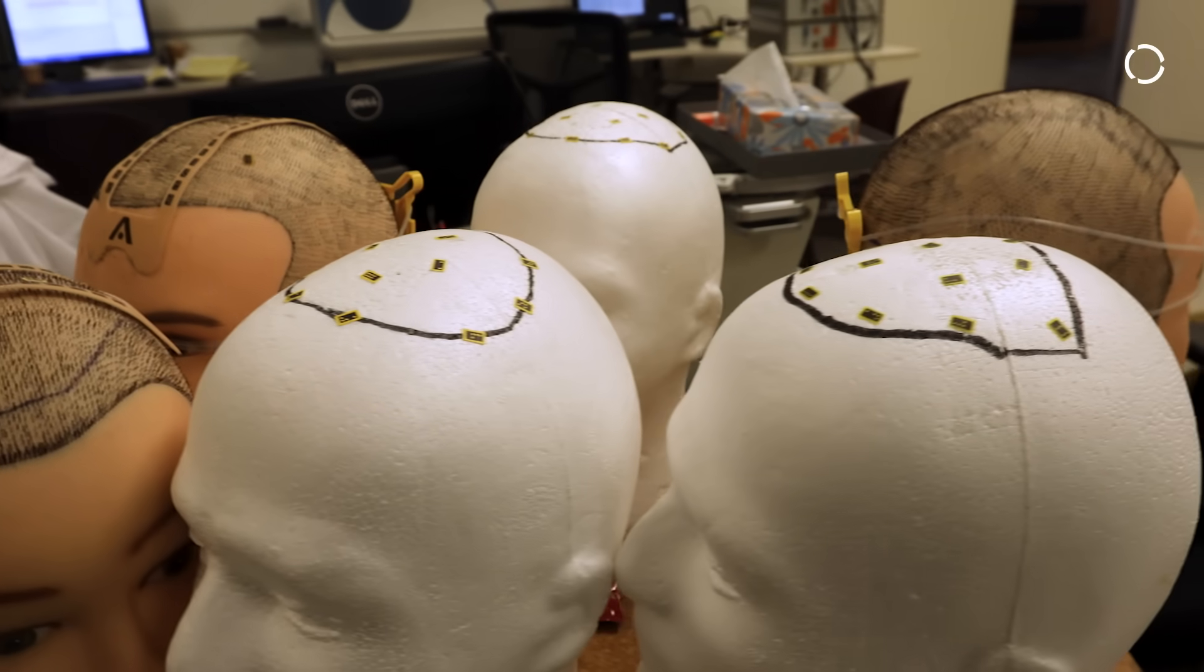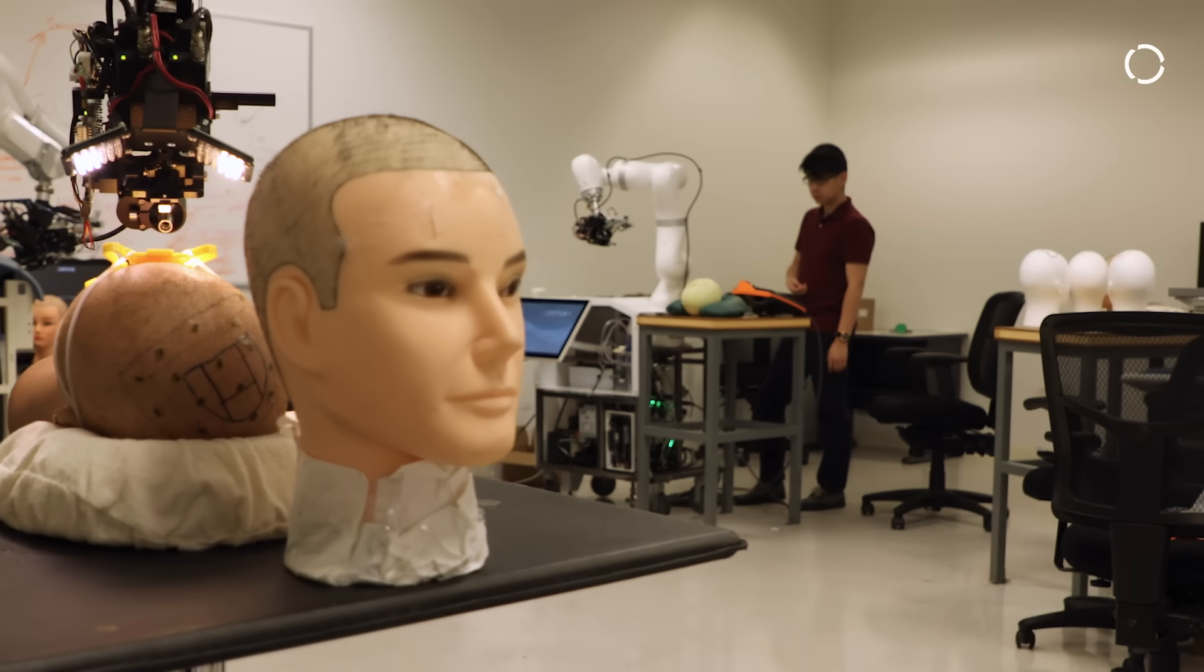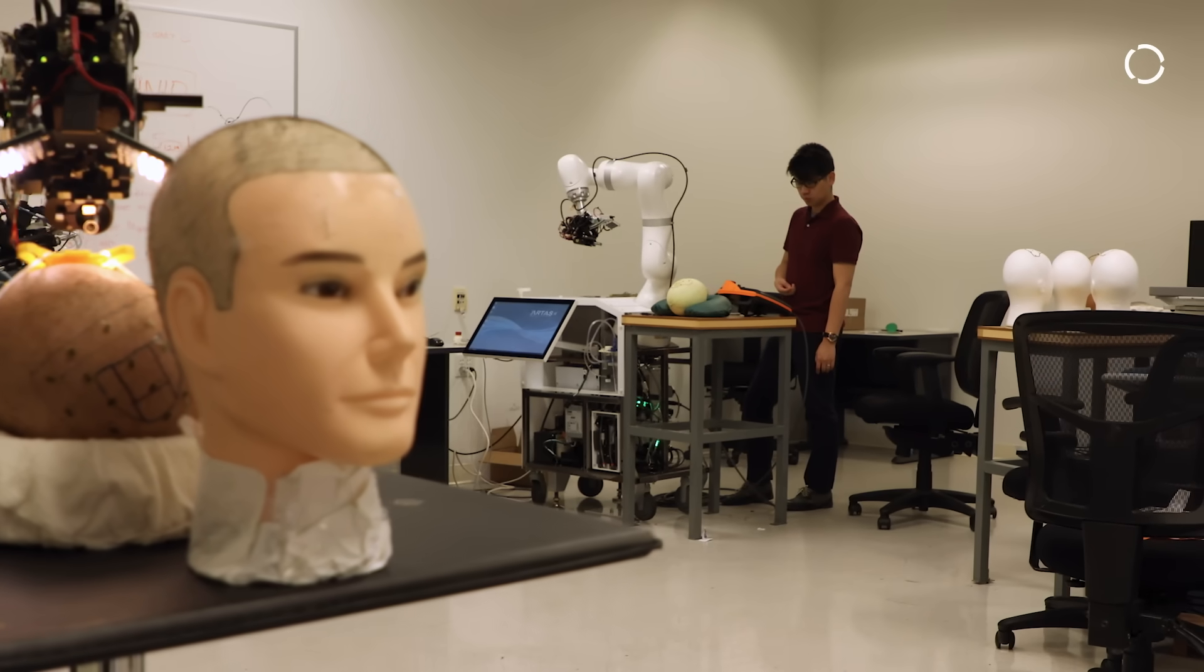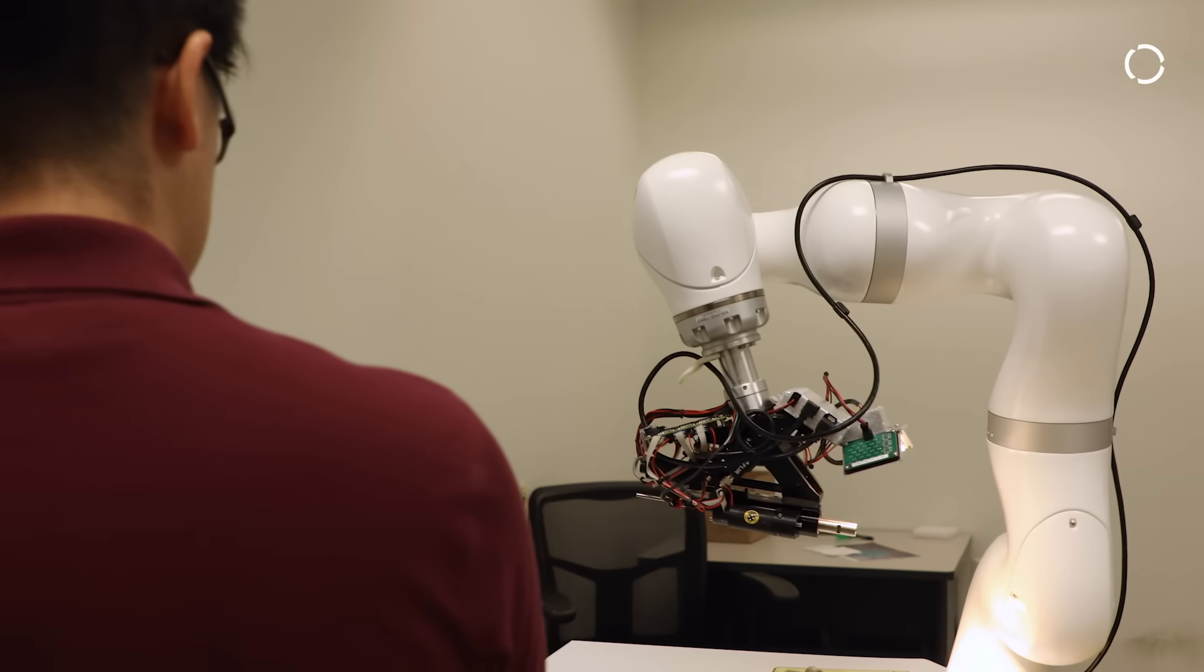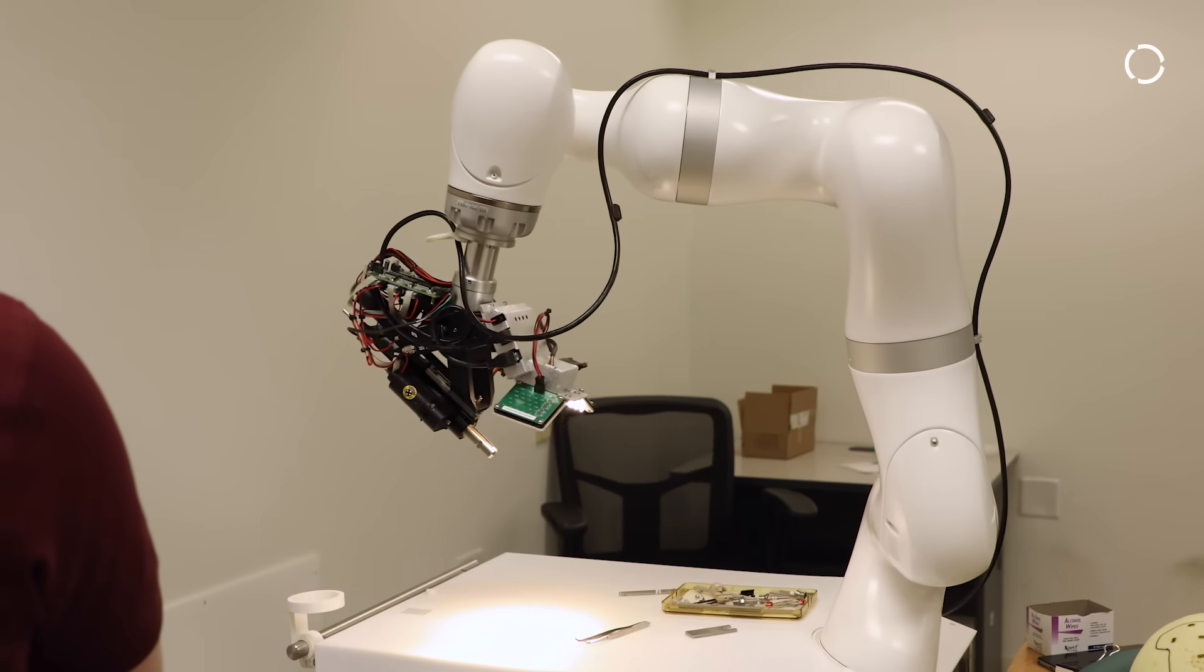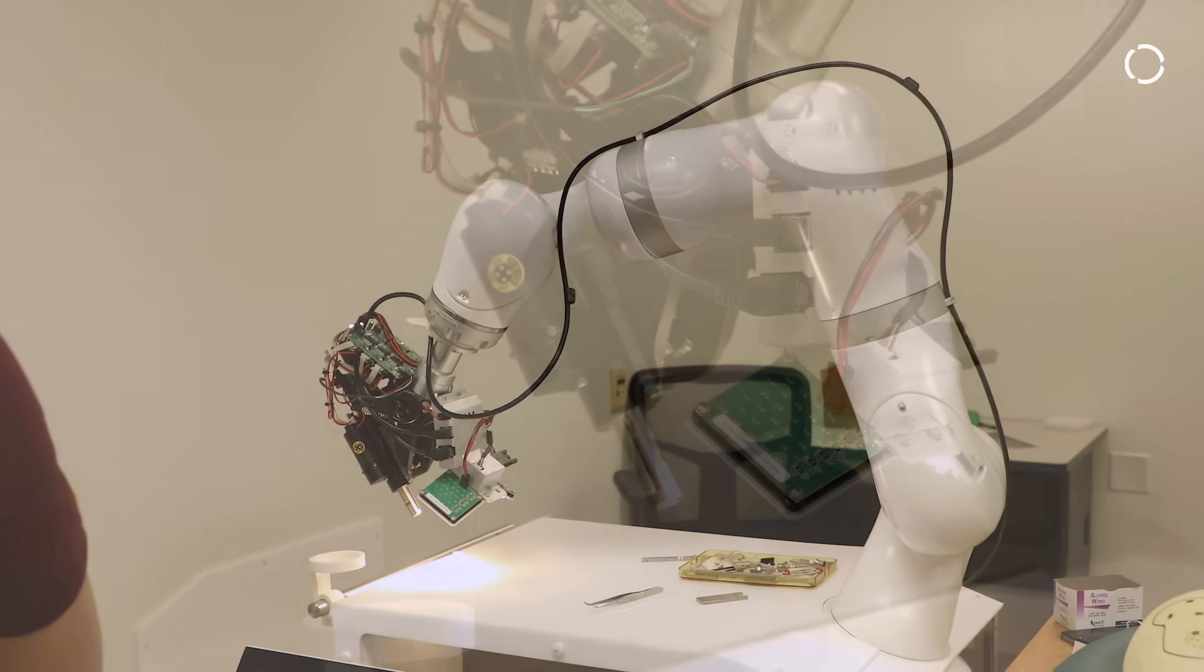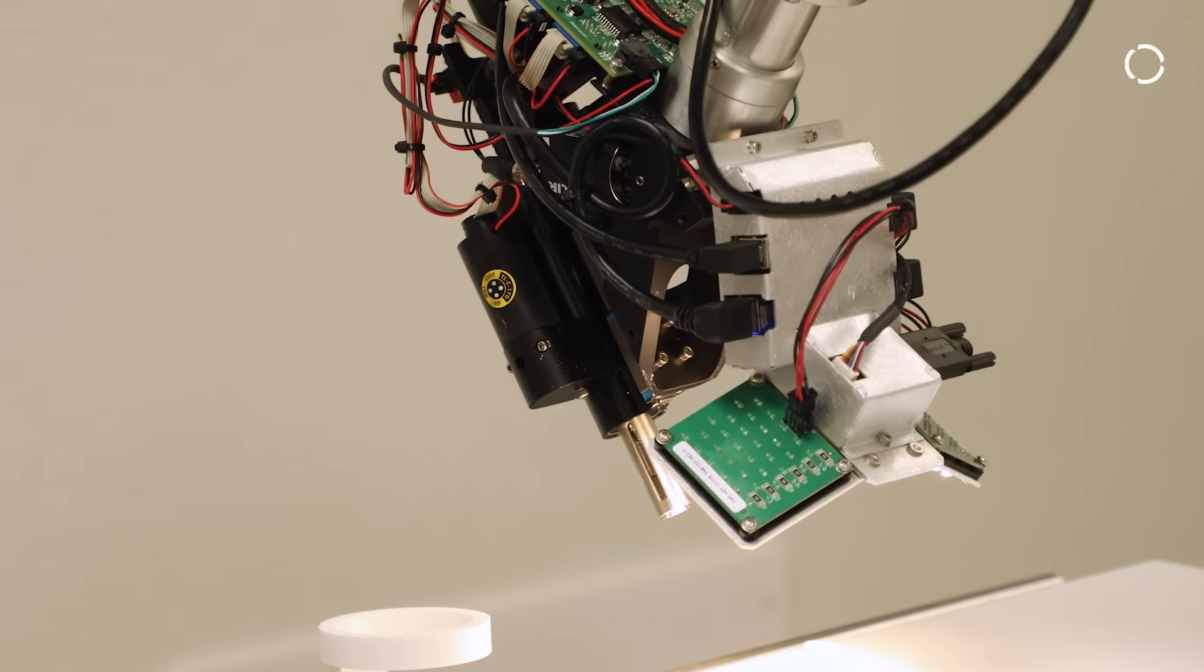The reason why Restoration Robotics partnered with Kuka is because the relationship started just out of pure willingness of working together. One of Kuka's regional sales managers just loaned us a robot. It was a handshake and I told them they're needed for a month and it turned out to be needed for like a year. It just kind of magical happened and by the time we realized the platform was solid, it could work, we could build a system. At the time we knew the relationship was going to work.